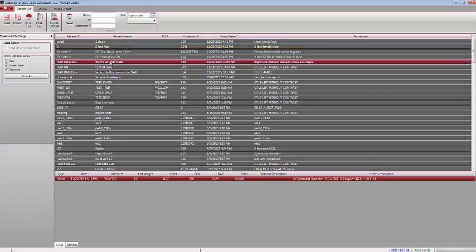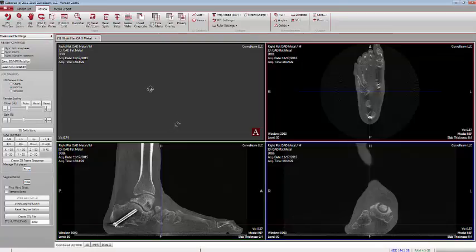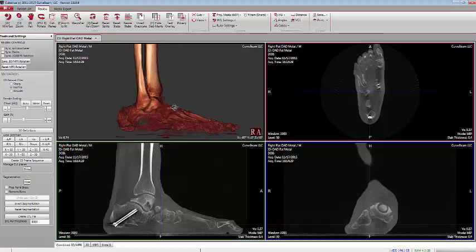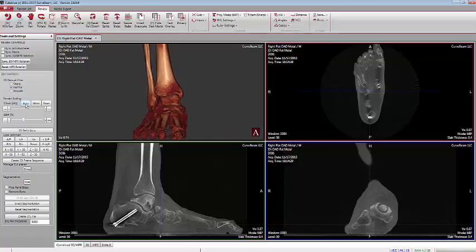If we have a scan that has metal present in it, often after we open it up we can't seem to find the volume entry — what we see instead is a blank gray area. The new button called Auto selects a range approximately halfway through the density scale of what typically represents bone and soft tissue, and creates an image based on that. So whenever there's metal present, the Auto button will enable us to create a volume rendering much more quickly.